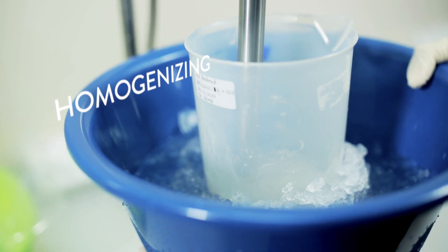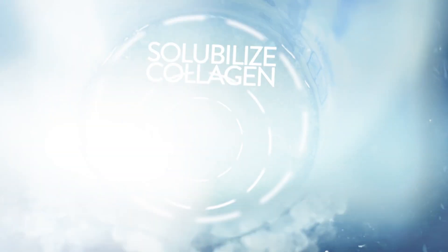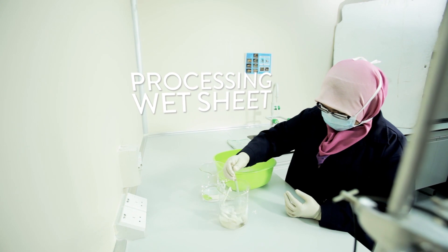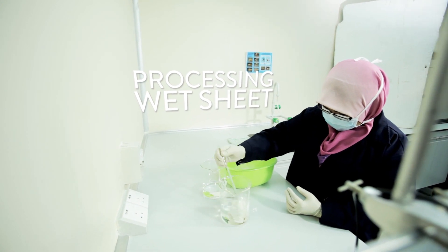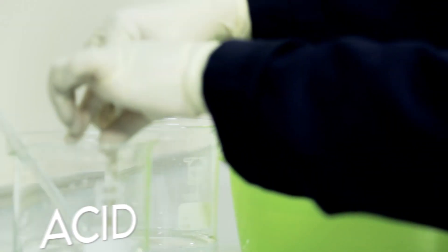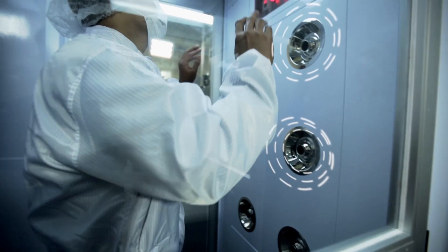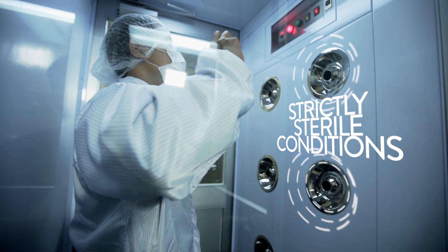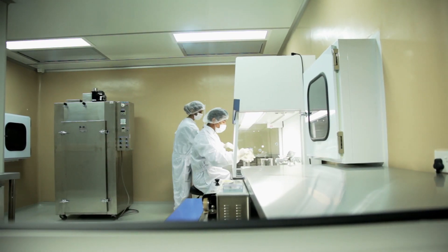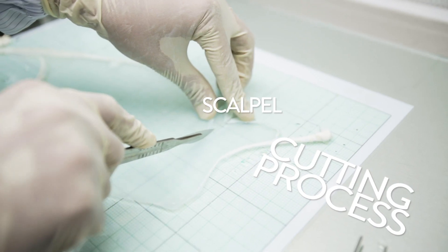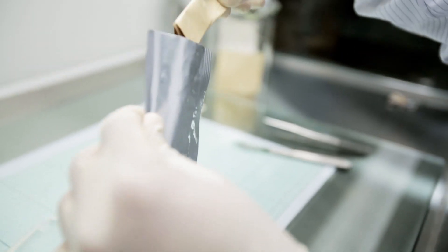A similar process is used for the manufacture of wet sheet collagen dressings. Every step that takes place in the production process of the collagen dressing is executed in strictly sterile conditions. The collagen sheets are packed into sachets after being cut into appropriate sizes. The sachets are sealed and later sent for sterilization.